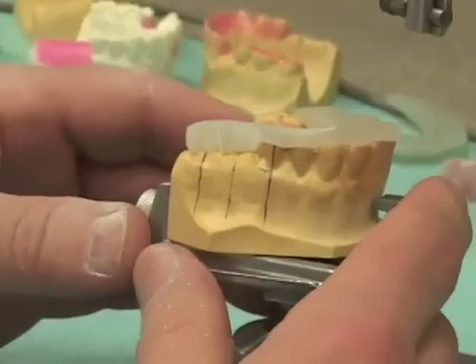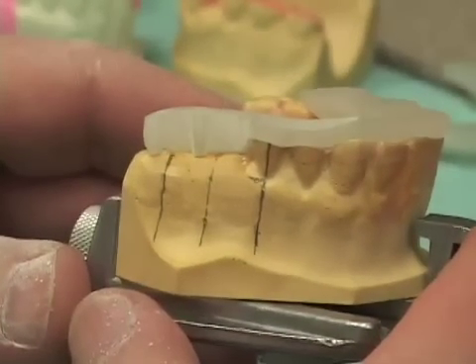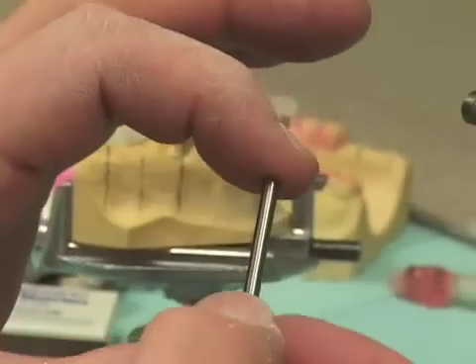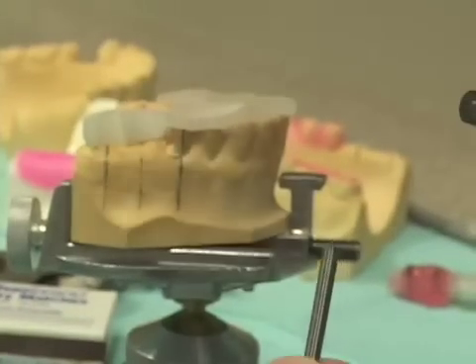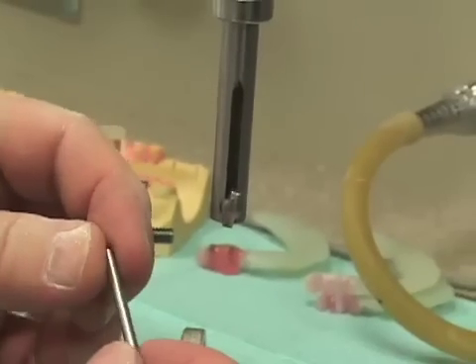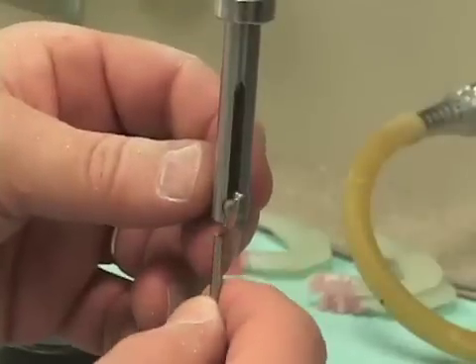We're now going to make our 3.5 millimeter drill guide. There's a slight difference with the fabrication of this drill guide: any drill sizes above 3.0 millimeters will not fit in our tool guide here.